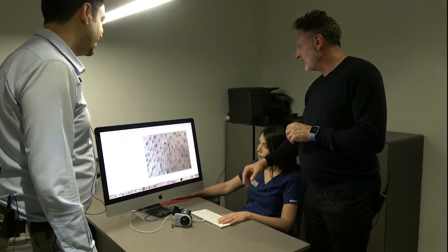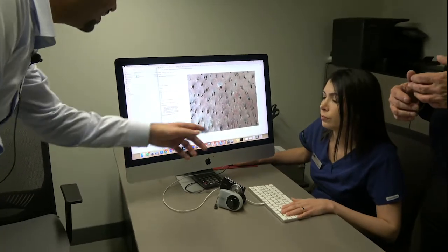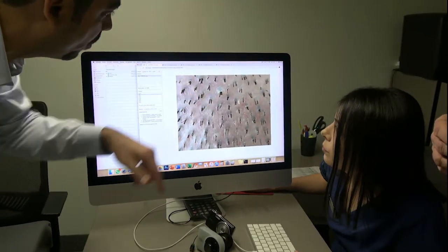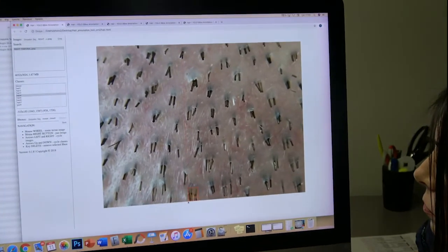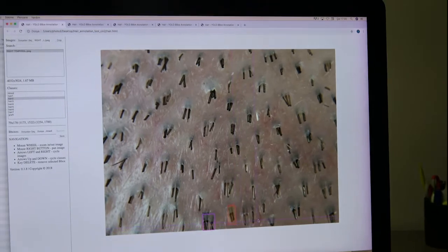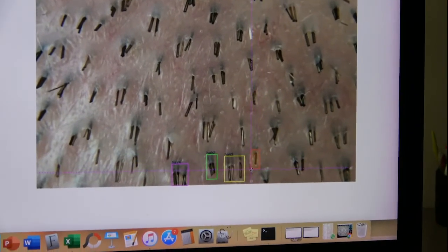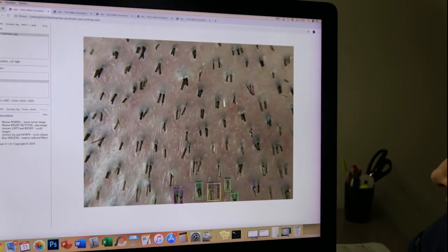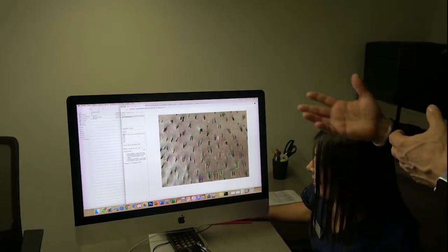So let's show how you determine how many follicles are in a sample. At the labeling phase, ICEL goes through all those samples. For example, this sample has four hairs, and another follicle has two hairs — three, one, two, two. She's looking at more samples than you — she's more educated than you and I at counting hairs.